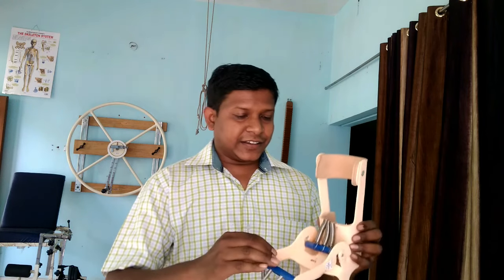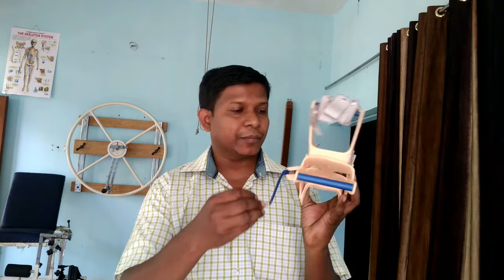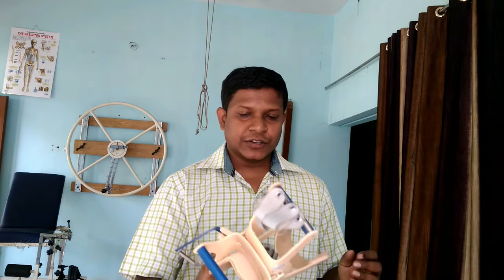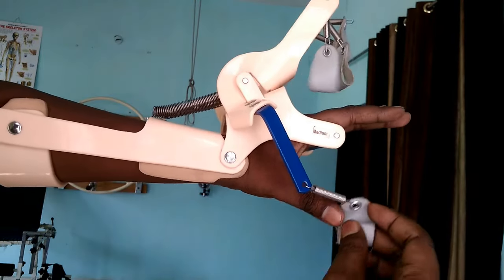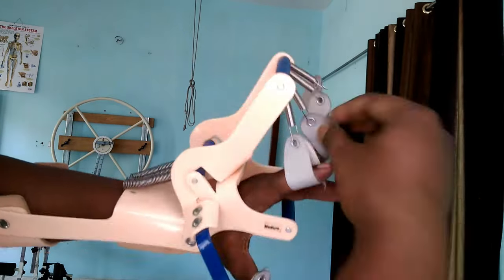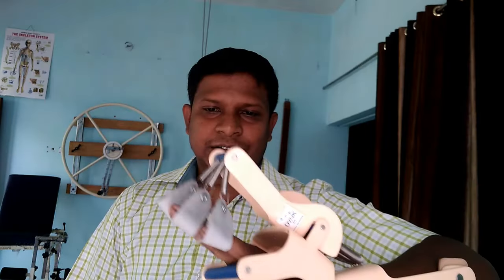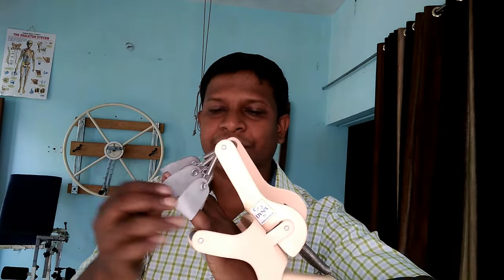As you can see, it has springs for the four fingers and there is a separate support for the thumb. There is a hinge placed at the wrist joint. You wear it like this, placing all the fingers into the supports. The springs help to hold the fingers in position and this part holds the thumb.